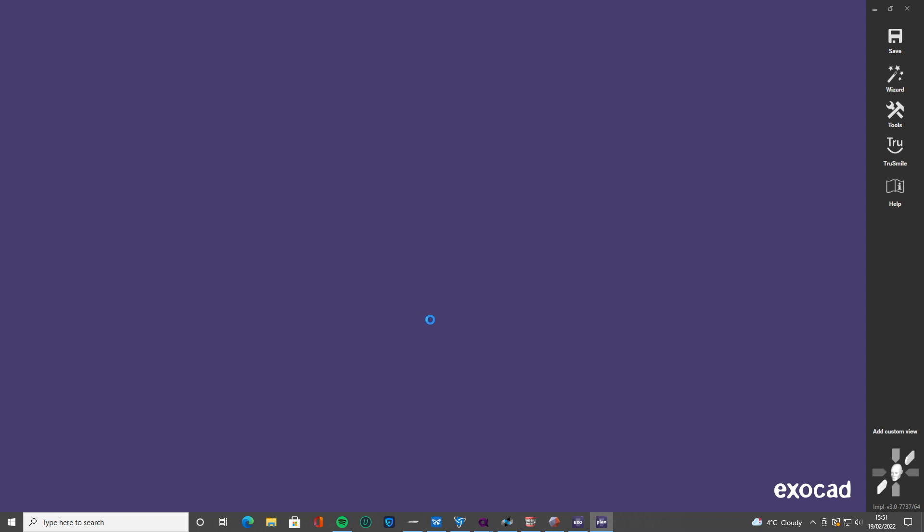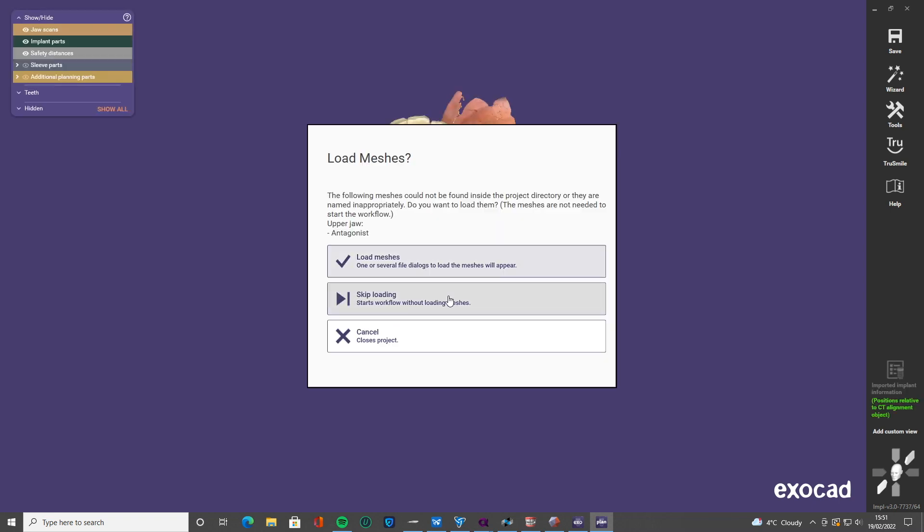We're going to be able to then, just with a few easy clicks of the wizard, go through the steps and design a really nice guide. I'm going to show you a few little tips along the way as well.